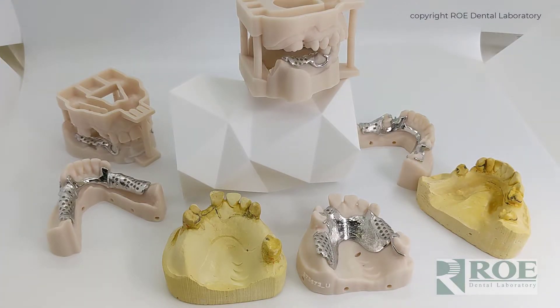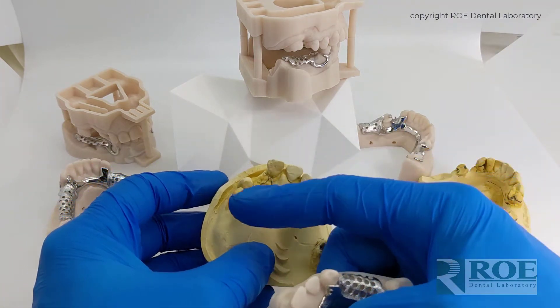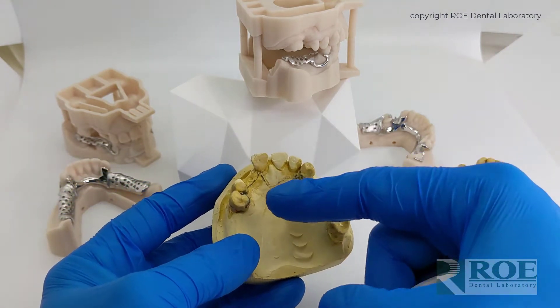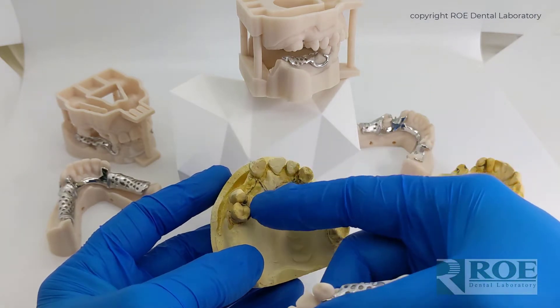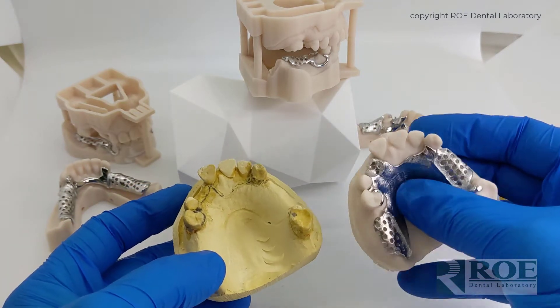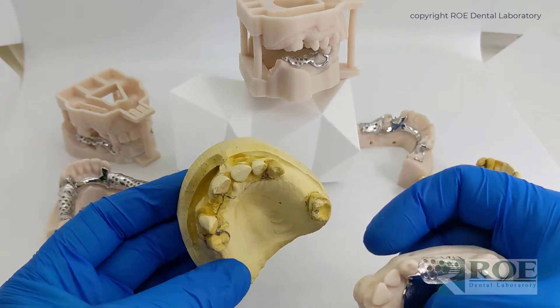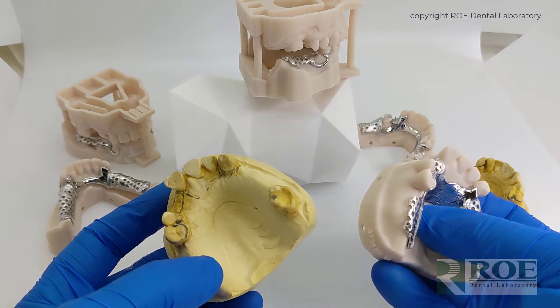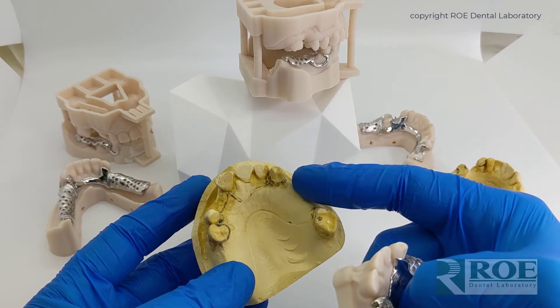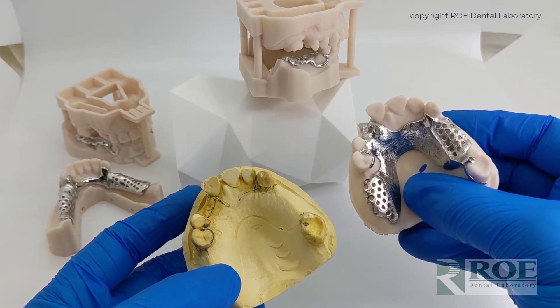As you can see here, there are some examples of these partial frameworks. Some frames that we design are still from scans of casts. The doctor will send in the normal traditional records and we will draw a basic design of the frame, then bring it into the software, design the frame, print a resin model for fitting, and preserve the MasterCast. It's always nice — in fact, necessary — to have a duplicate model for a partial because we're going to do the processing of the acrylic on the MasterCast, but for fitting and verification and chipping, we send it out on a resin model.